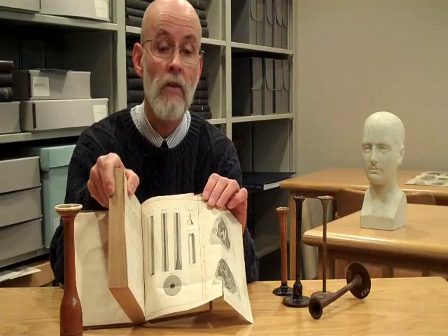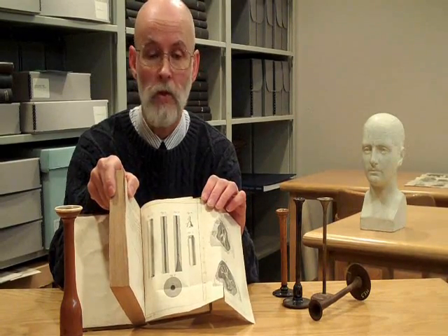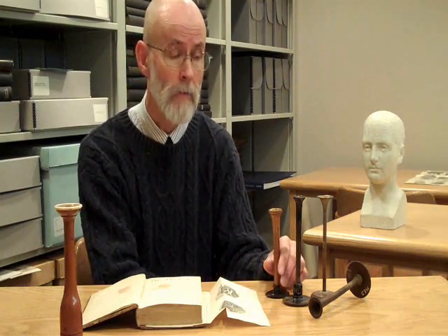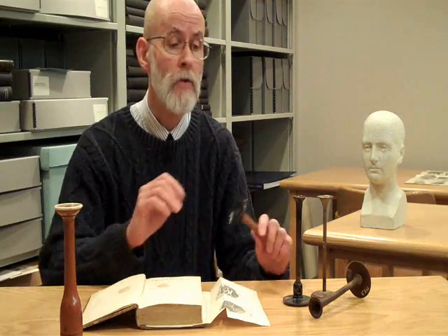This particular plate is illustrating this particular stethoscope. The stethoscope took a couple of decades to catch on. The book wasn't published in English until 1823. It spread progressively, but only gradually, throughout Europe and North America. And the original stethoscopes were all monaural.